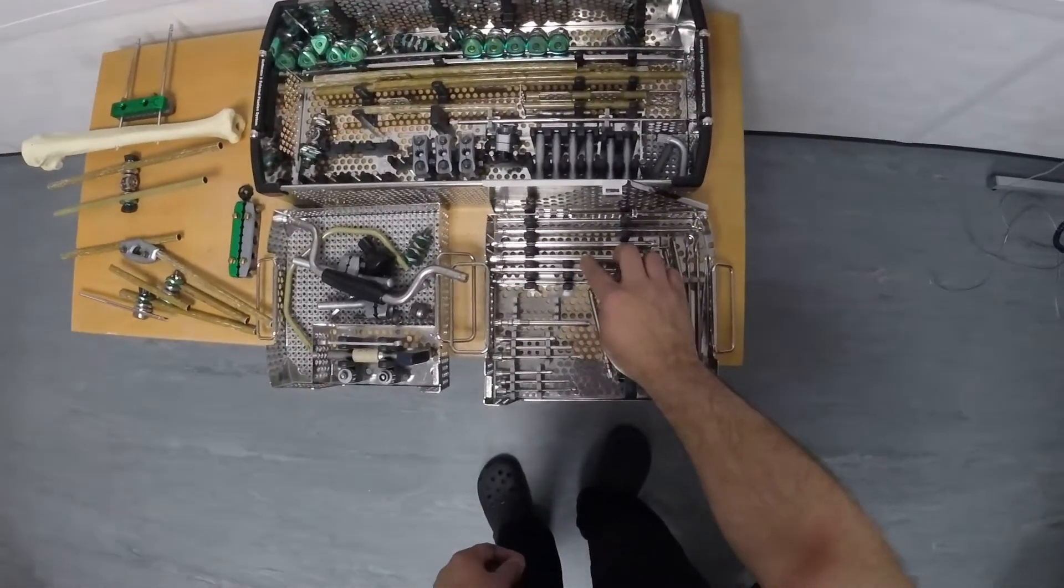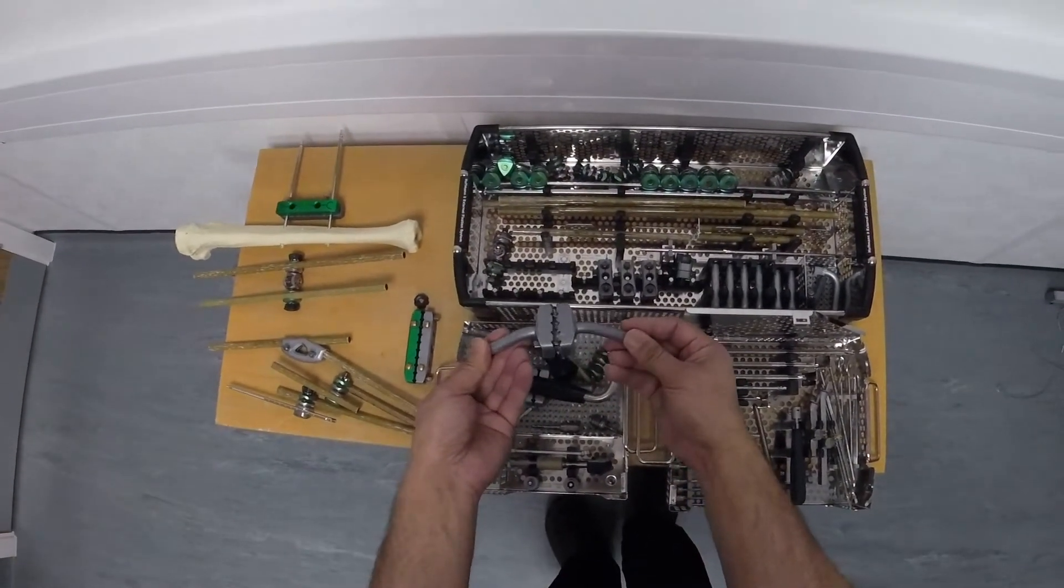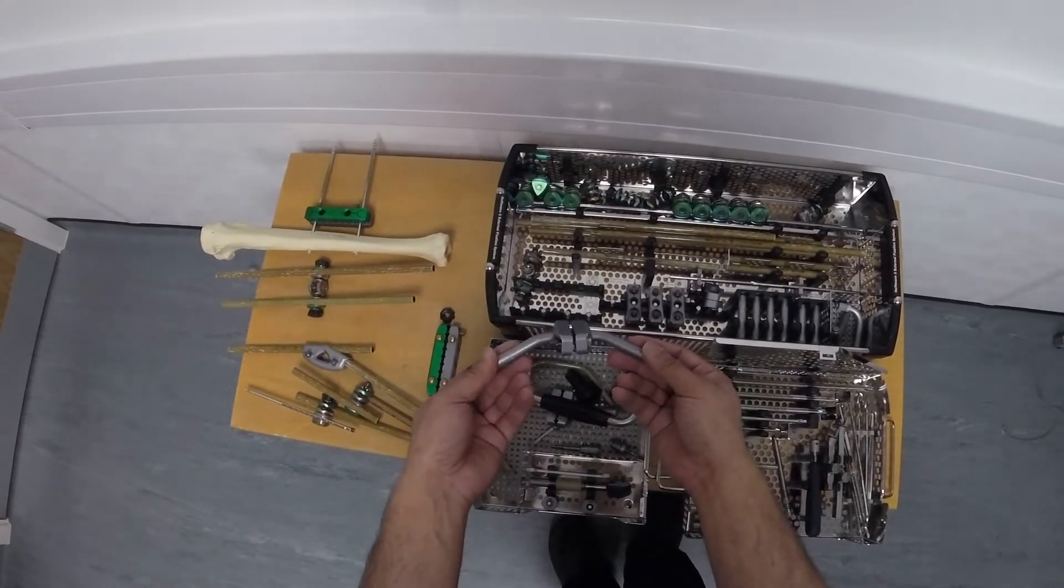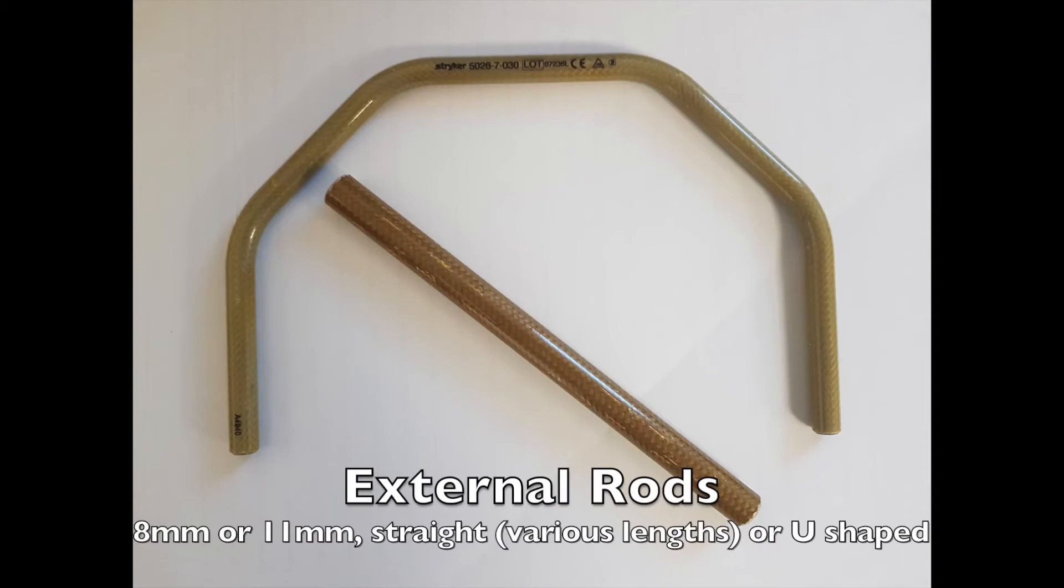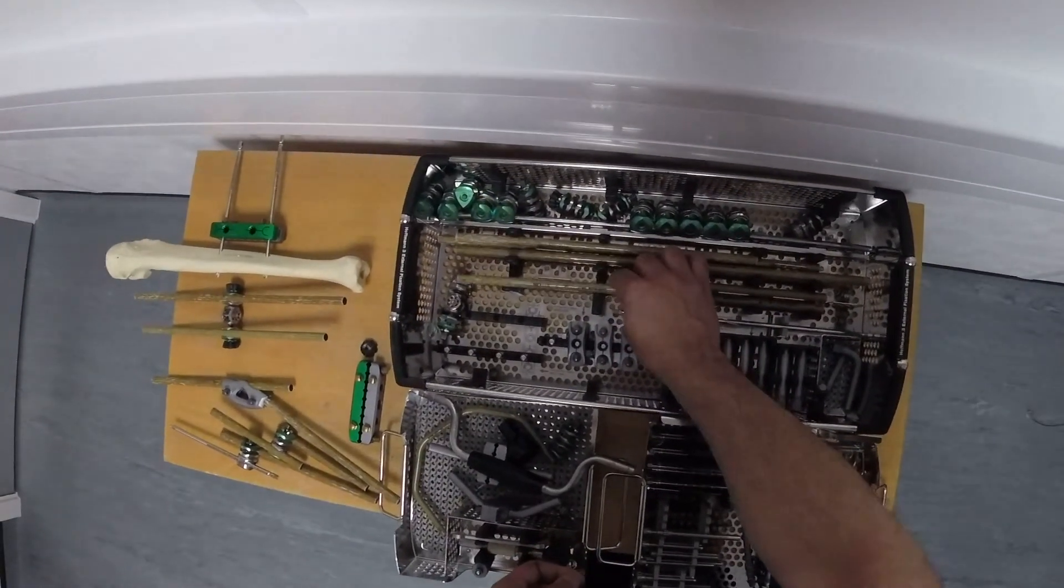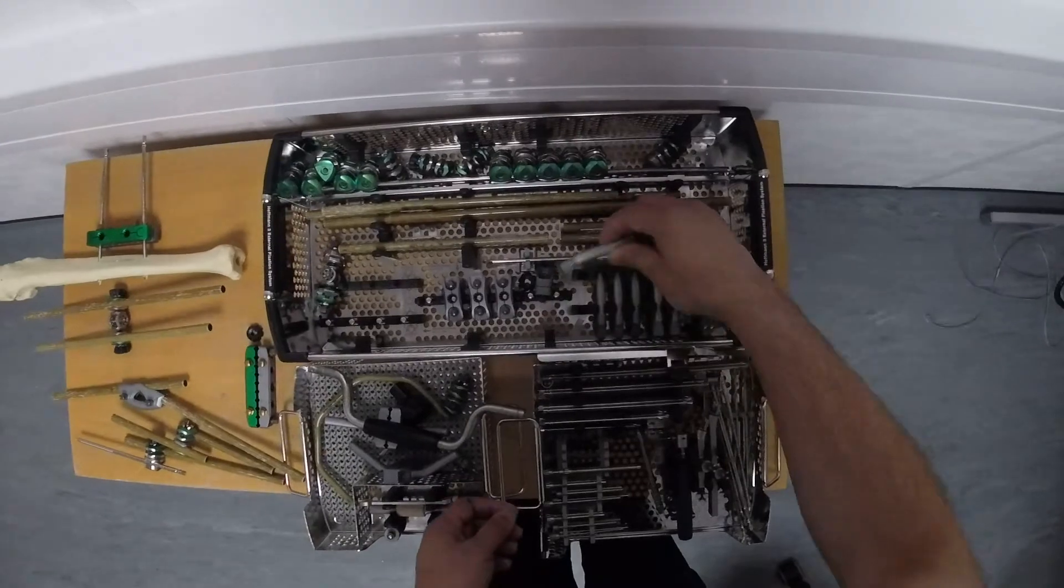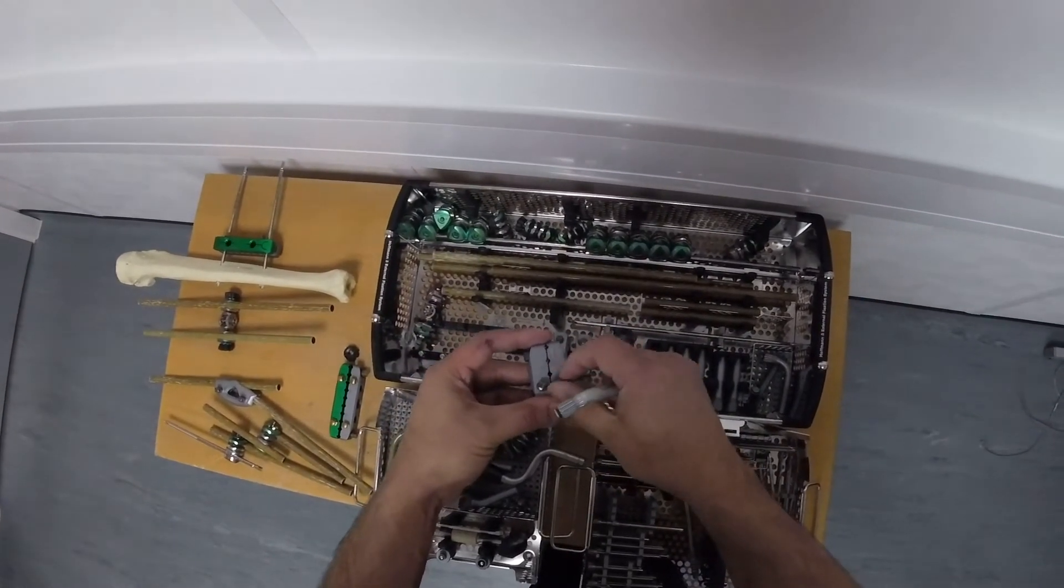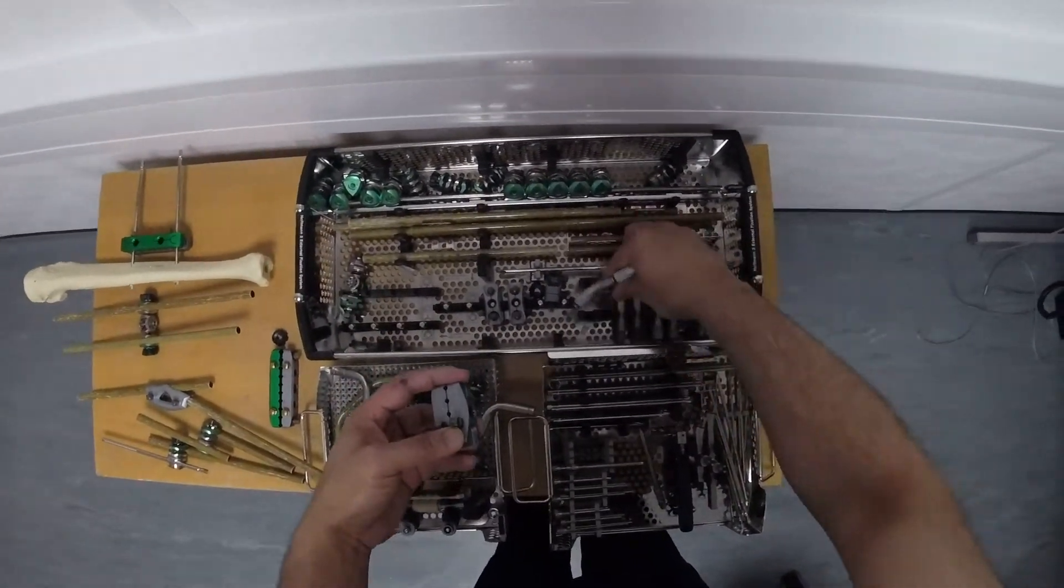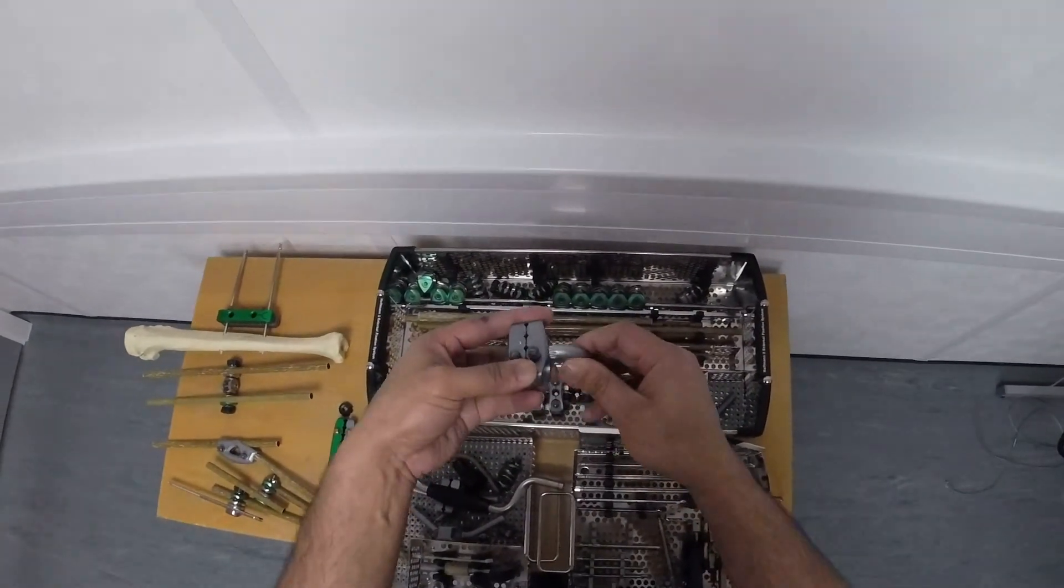And have a look at the other components on the set. So apart from the apex pins, here are some pin blocks, which are ready made and then mounted with external bars. And these external bars can help save some time. And they're mounted off in a direction of about 30 degrees from the horizontal. Here are some more of the external bars. And these come in various sizes. This is going from 150 all the way up to 400. And there are different types of external connectors, which can go into the side. I'll just loosen that up so that fits in there. That's bent up 30 degrees. But there are also straight ones. There are also two different angles. As well as one that changed previously, which is at the right angle.